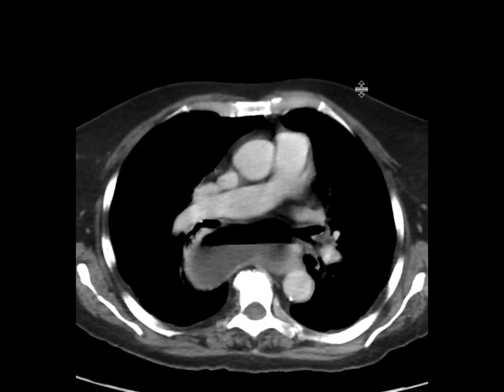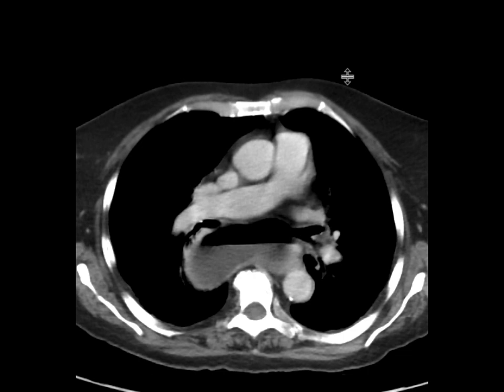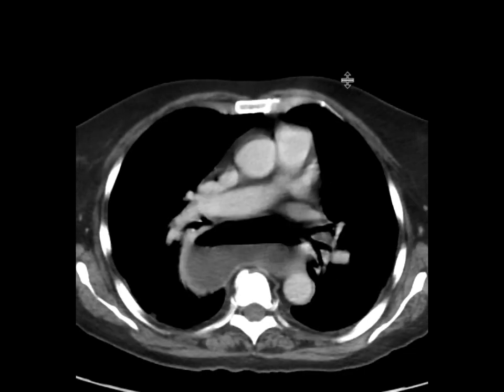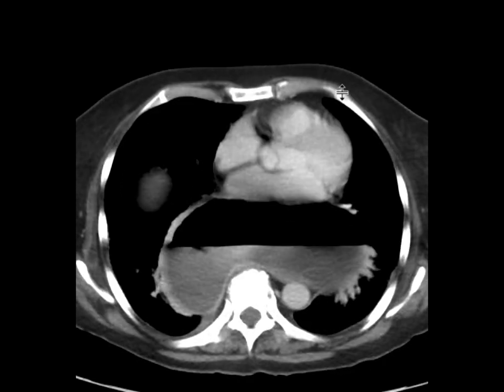This patient has abdominal pain, and we were asked to get a CT scan of the abdomen and pelvis. We did this with intravenous contrast.